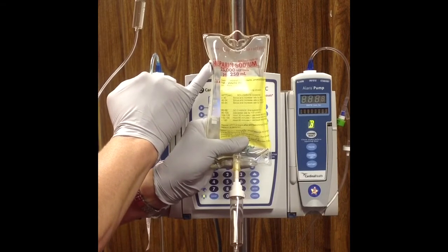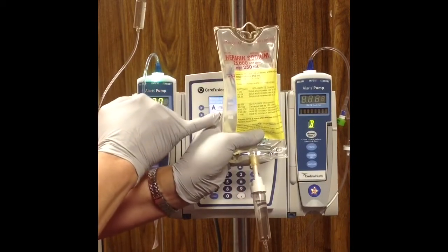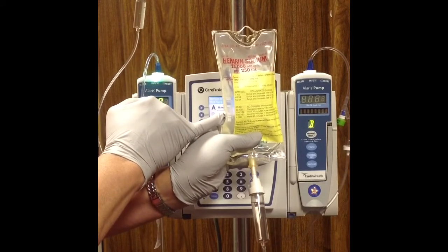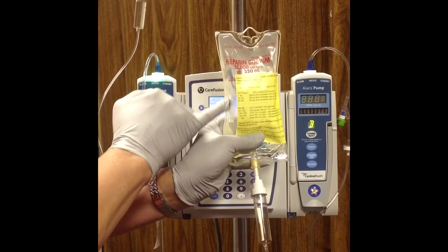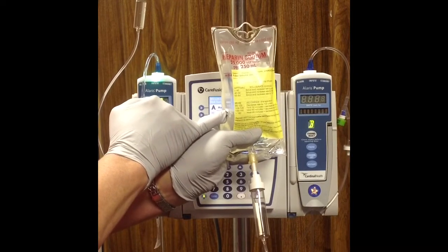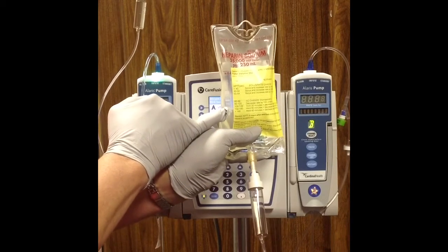We've got a barcode that you can see on the left-hand side that actually comes printed on the bag. So we're going to use that barcode to scan our continuous medication infusion, and we're also going to scan that barcode to use our bolus from the bag function. Another example of a medication that you might see pre-mixed would be magnesium sulfate.